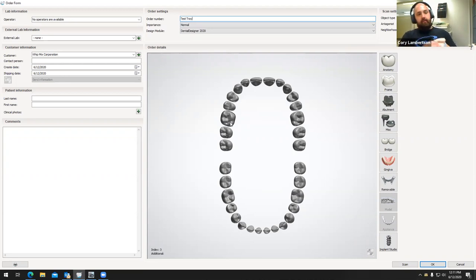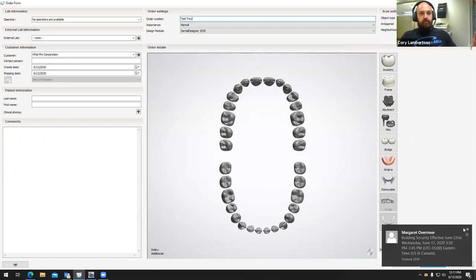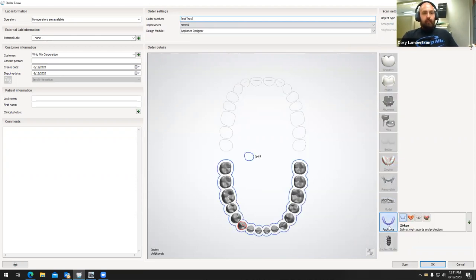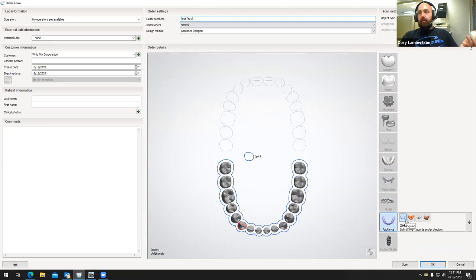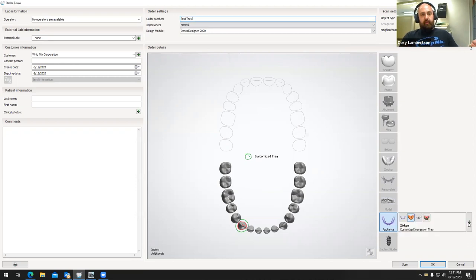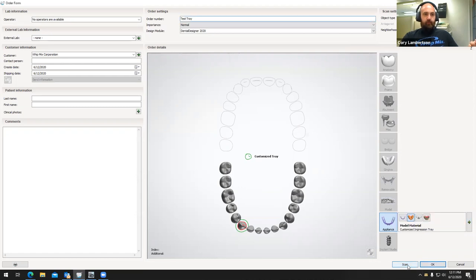Then I'm going to go over to appliance. This is found under the appliance section of your order form. I'm going to select an appliance — it's going to default to splint — you're going to go one over to the right: custom impression tray. It doesn't really matter what material you use to fabricate this inside of the 3Shape software, but I am going to change it to model material because we would traditionally 3D print the structure. From here, I'm going to select scan.